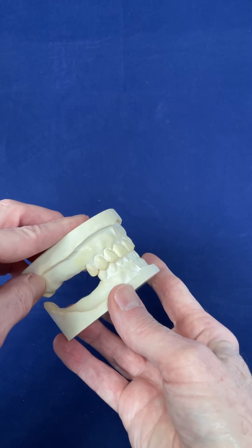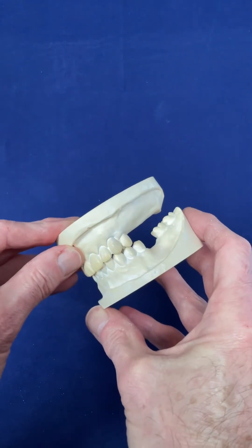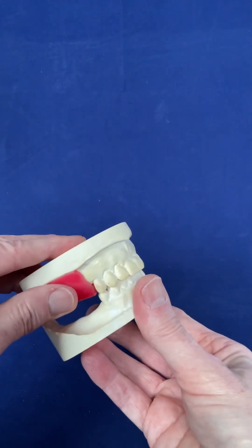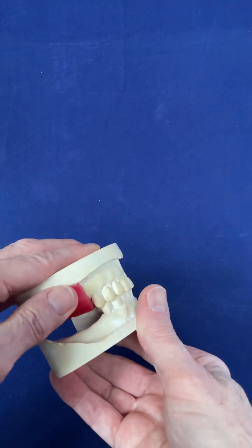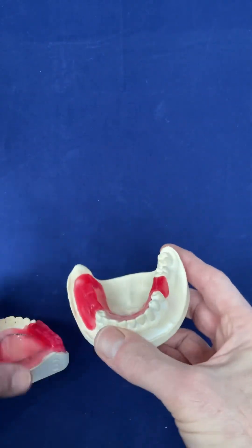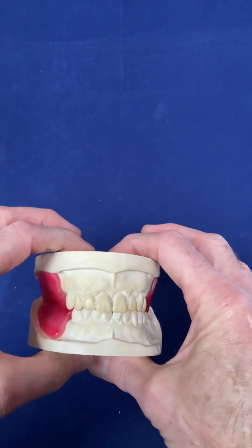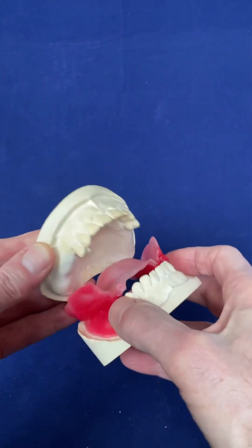The problem now is you cannot hand-articulate the cast because there's no posterior support — the models can be anywhere. In this situation you need occlusal registration rims to record the bite. You would have an upper occlusal rim made; when the patient bites together the left-hand side rim touches the teeth fine, but there's still no posterior stop on the right. So you need two occlusal rims and a bite registration material between them. You cannot use a bite registration material just squirted on the ridges — that's totally inadequate, ask any technician.